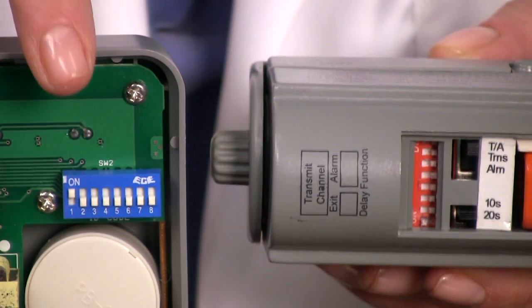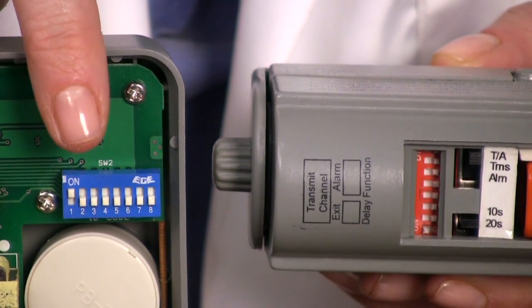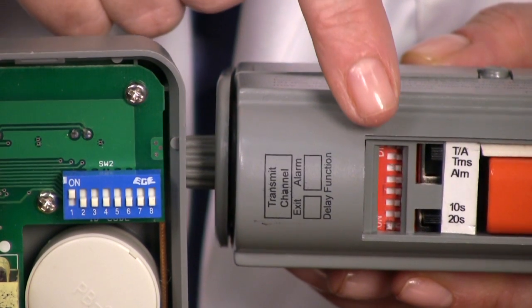Now that your sensor unit is set up tested and ready to use, set up the remote receiver. After installing four C cell batteries, pair the PIR alarm unit with the remote receiver to establish communication. This is achieved by using the blue dip switch module above the batteries. Set each of the eight white switches to match the positions of the PIR unit.